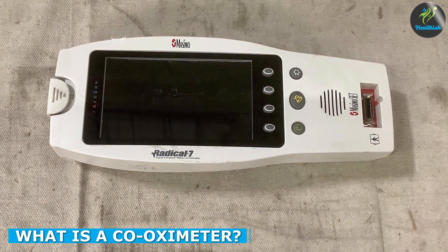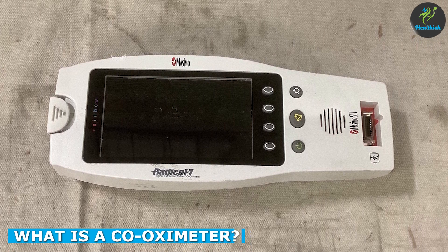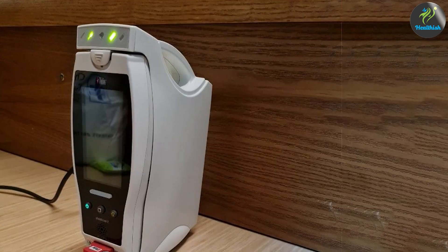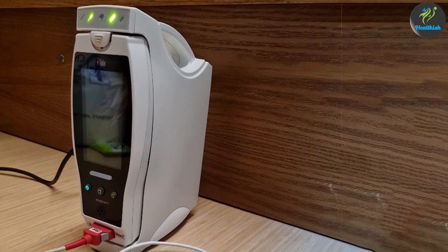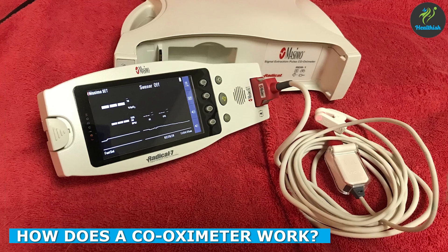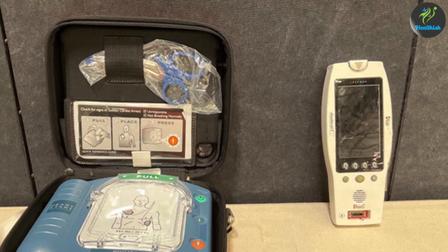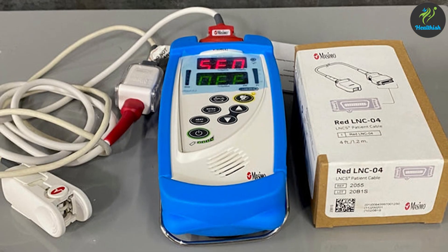A co-oximeter is a medical device used to measure the various forms of hemoglobin in a patient's blood, including oxygenated, deoxygenated, and carboxyhemoglobin. It provides a more detailed analysis of a patient's blood than a pulse oximeter and is often used in critical care settings. A co-oximeter works by using spectrophotometry to measure the various forms of hemoglobin, using multiple wavelengths of light to determine the amount of each type of hemoglobin present in the blood sample.